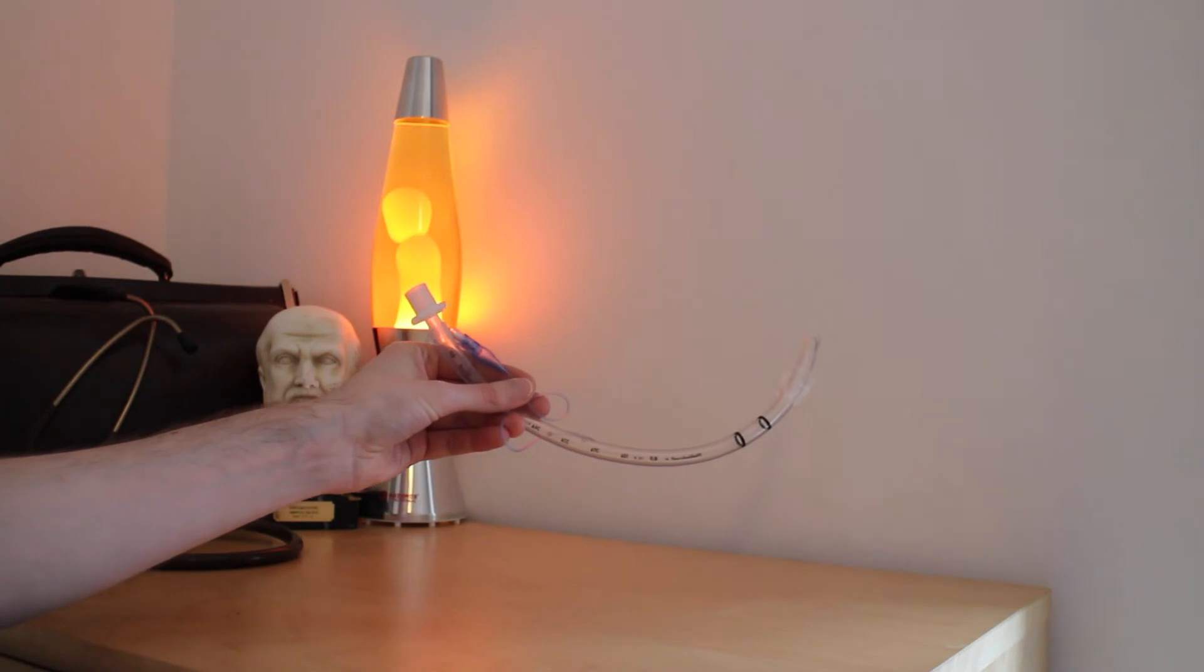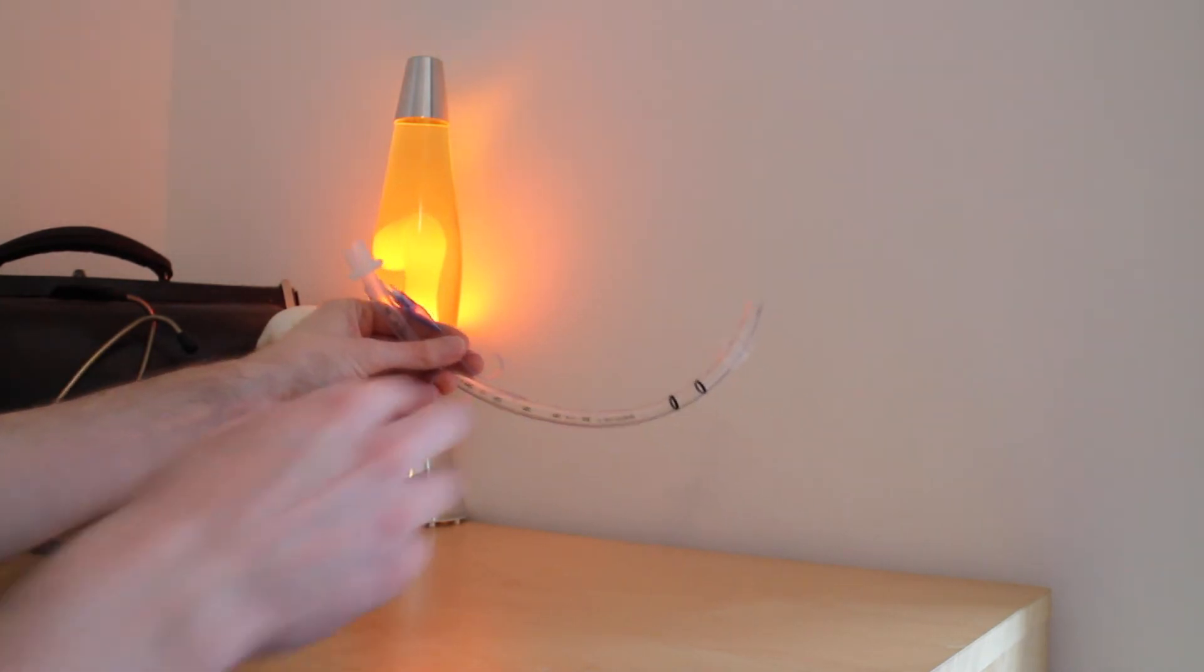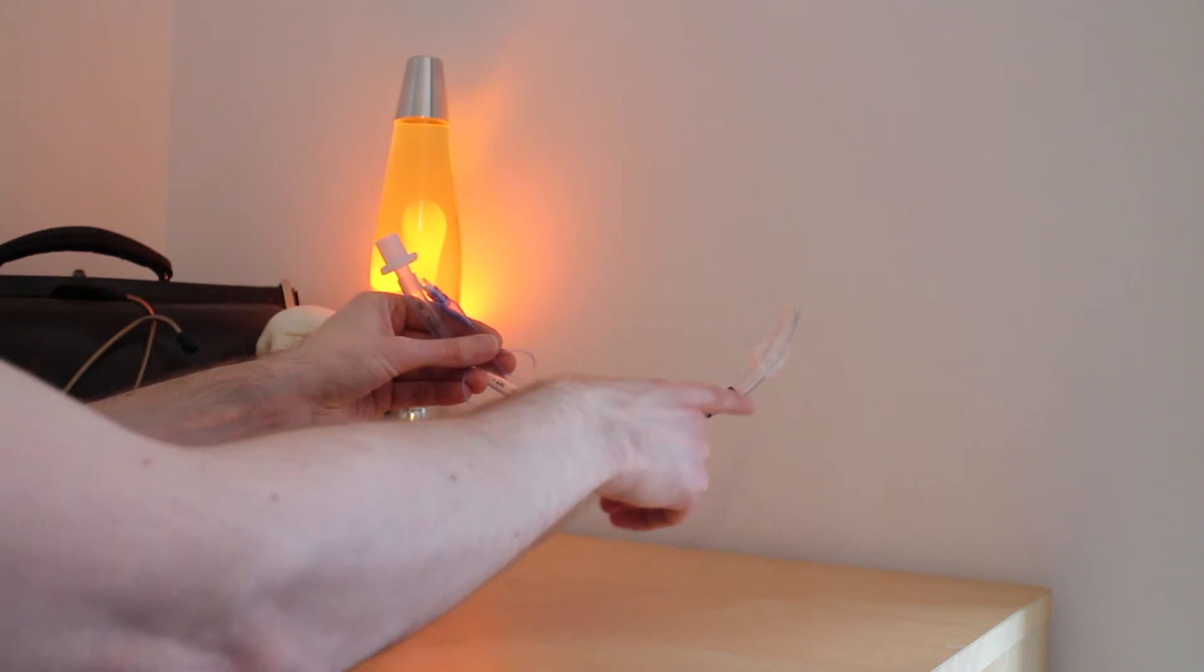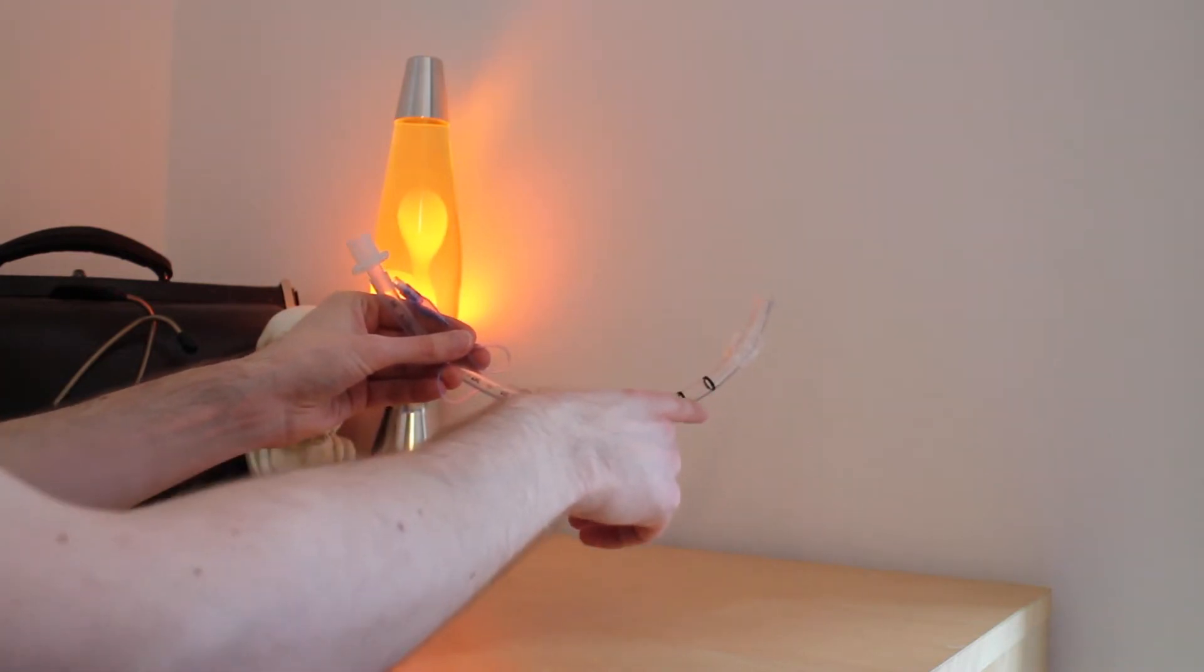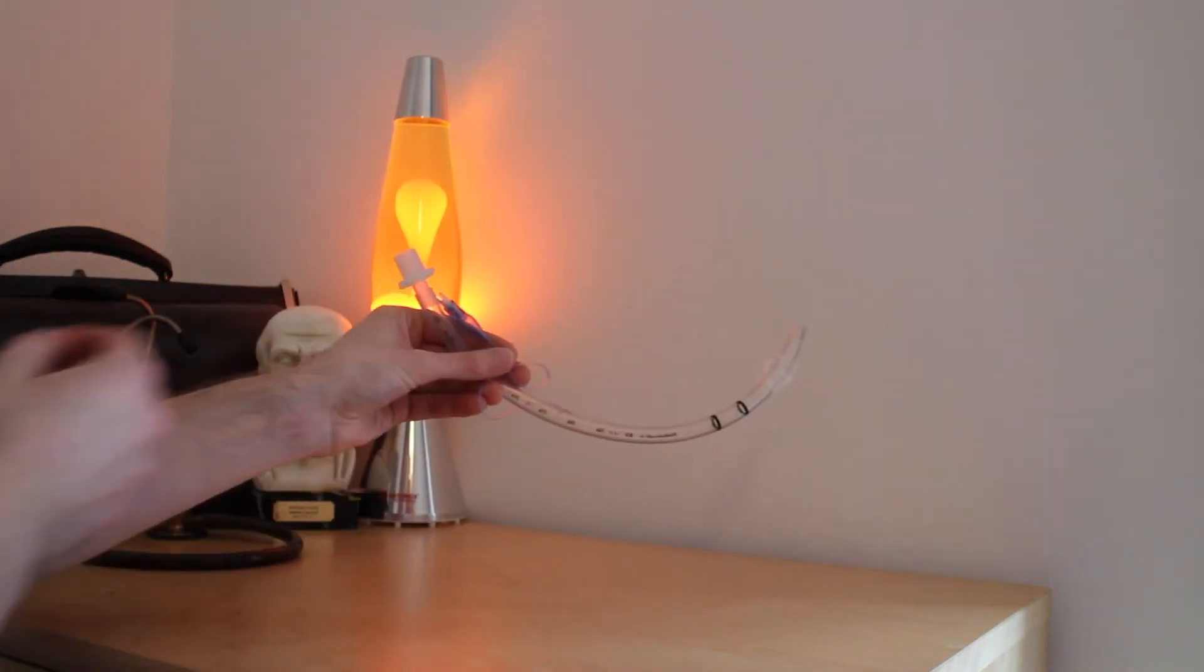It is used to provide us with a definitive airway in patients. Definitive because it lies below the level of the vocal cords and it has a cuff to secure it in place.